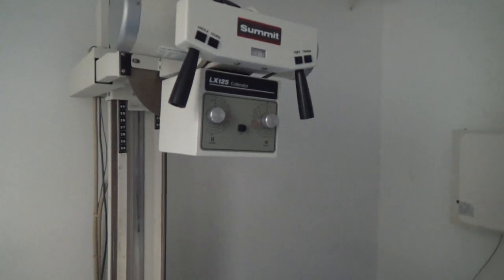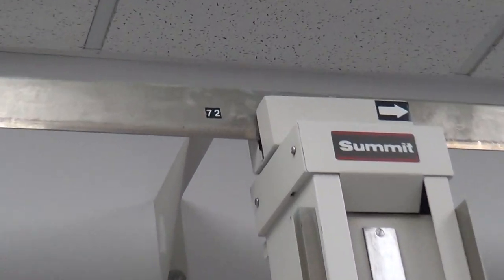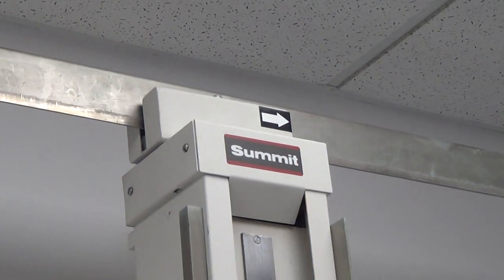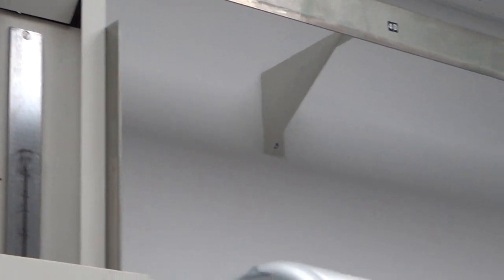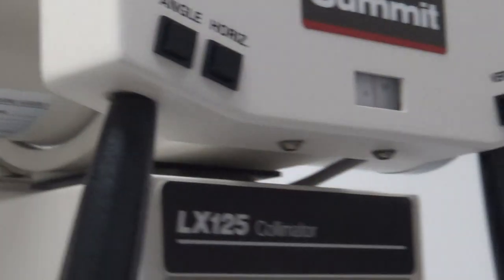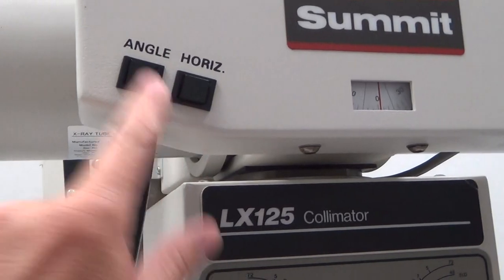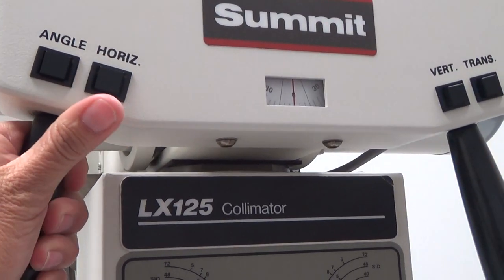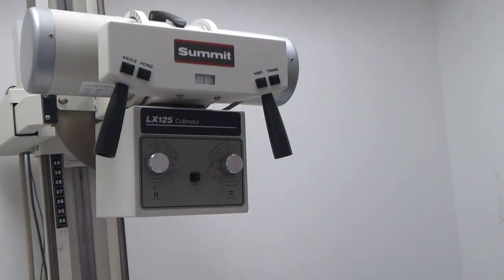To figure out your distance for the upright, up here on the top there are actual markers for distance. So that's 72 over there, and 40 is right here — you can hear those locks click in to that spot. It's very important, as Mrs. Harmon was showing you, you have to push these buttons in when you're moving the equipment. If you want to angle it, you have to push that button in to move it, otherwise it does not move. If you do force it, you can strip those gears, and that's going to be an issue.